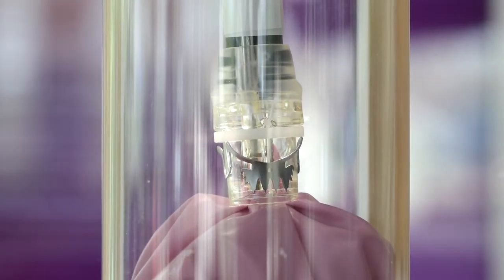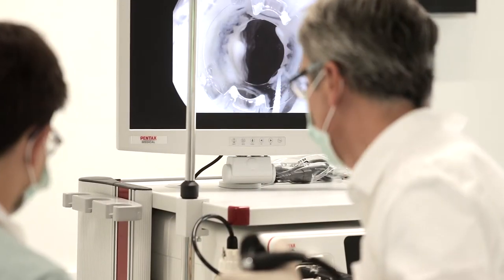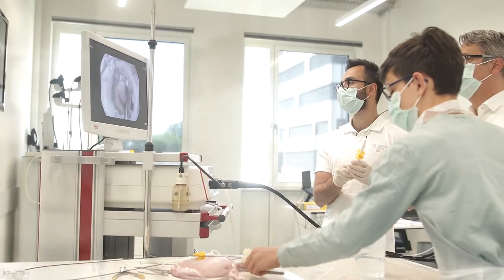The FTRD system is revolutionizing the treatment of colorectal lesions by preventing invasive surgical procedures.